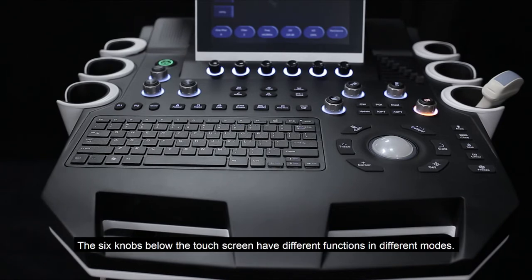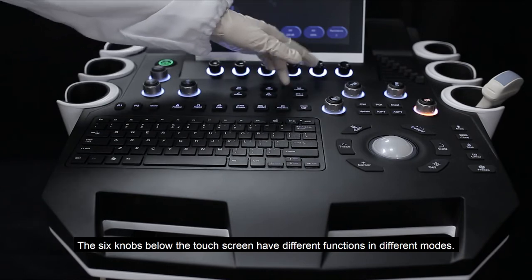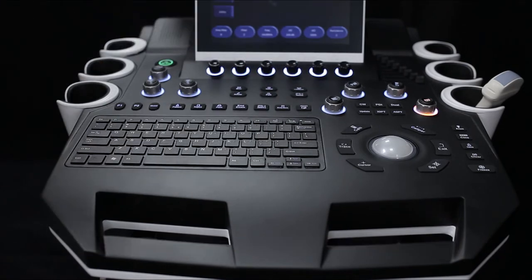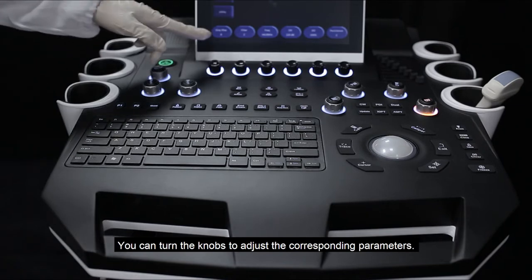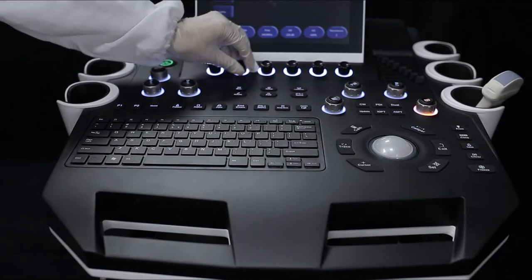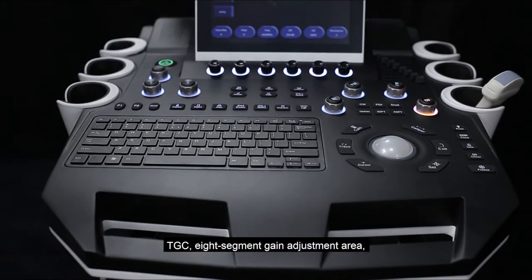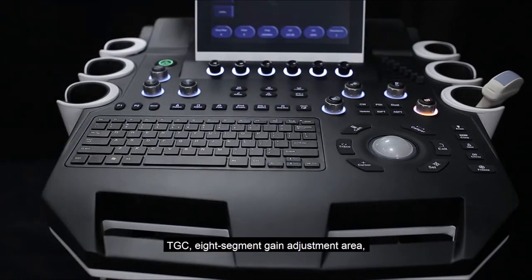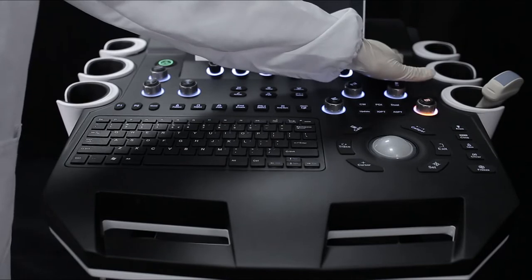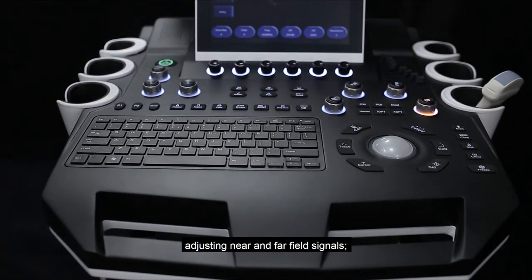The 6 knobs below the touch screen have different functions in different modes. You can turn the knobs to adjust the corresponding parameters. The TGC is an 8-segment gain adjustment area for adjusting near and far field signals.